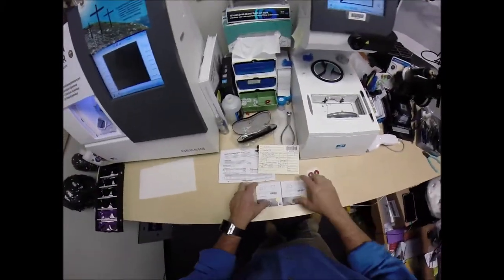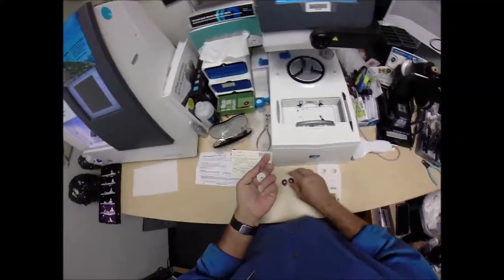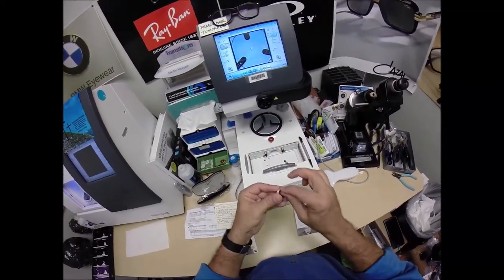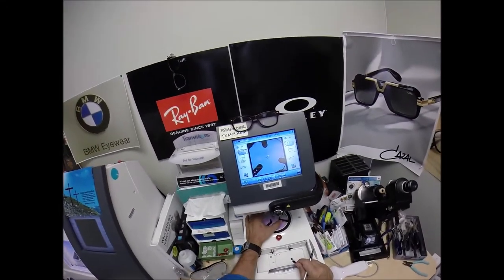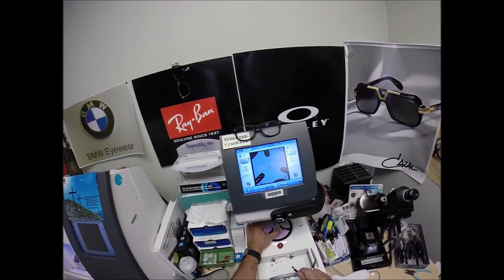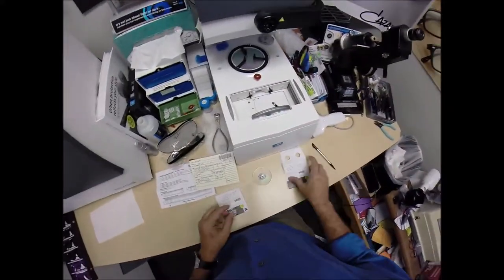I'm going to take your right lens out of the protective packet and place it onto the platform. I need to attach a block to your lens while it is cutting, using two double-sided adhesive stickers — the black side is the sticky side. We're going to stick one onto the first block, then do the same for the second one. Pull the paper away to make the black side sticky. That silver button on the back is a magnet — it's going to do its job twice. The first time it attaches itself to another magnet in the arm and gets everything lined up. The blocks come down and the arm places the block onto the right lens. I'm going to do the same now for the left.